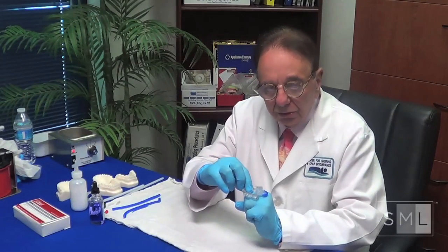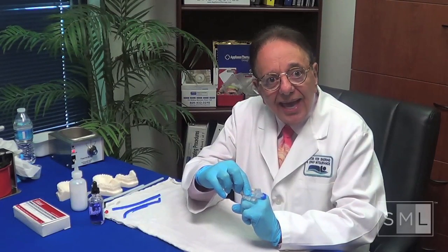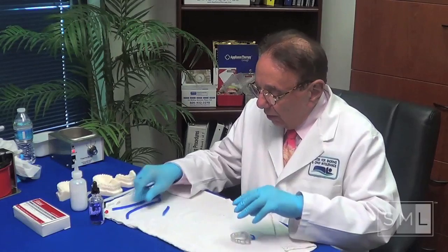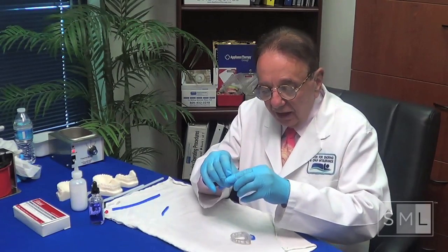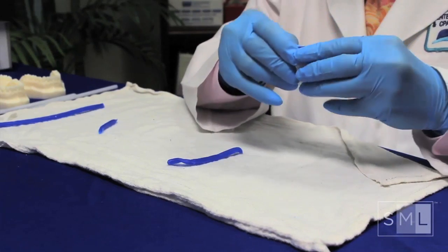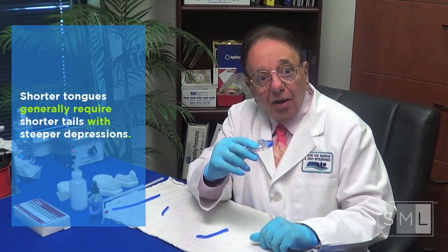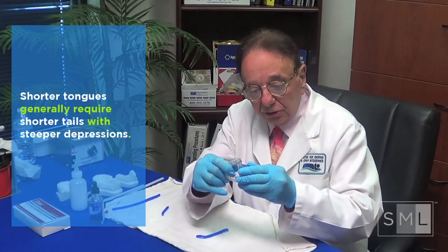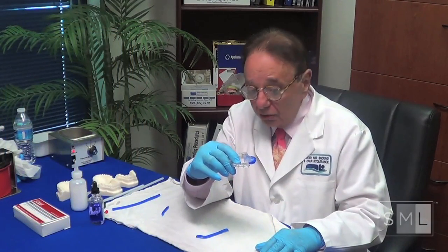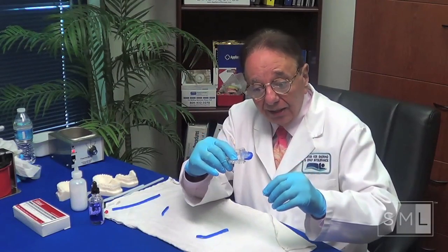For a small tongue where we're all the way back, we're going to add the same way we did the first time: add some length, then do our folds — three folds. We add the wax on the back in three folds. We are down quite a bit. We're a little short at the end but we add a little wax. Then we add the acrylic the same way as the first time: take the wax off, add acrylic, let it harden, trim it, smooth it, polish it.